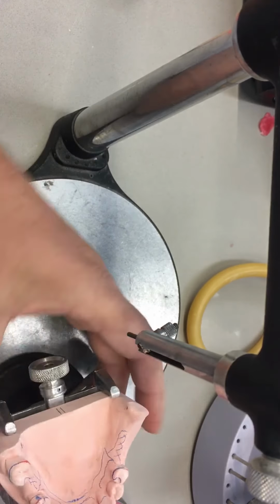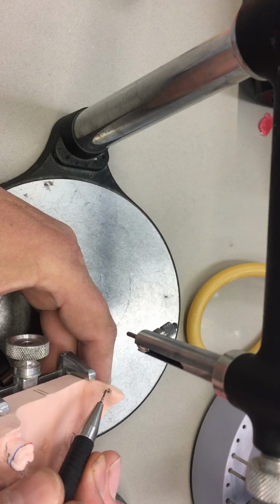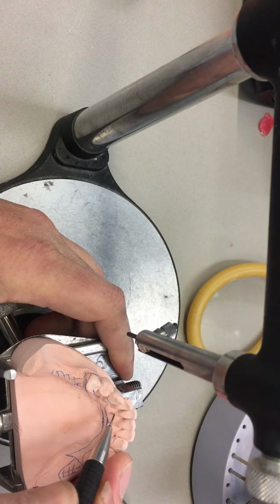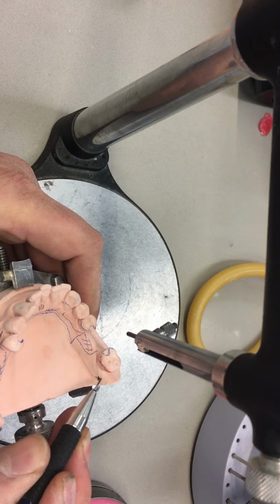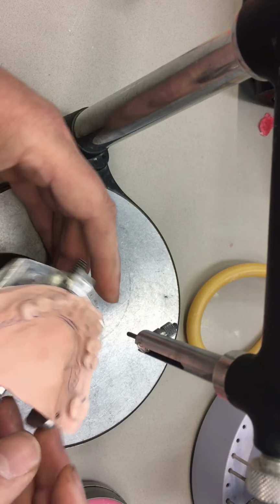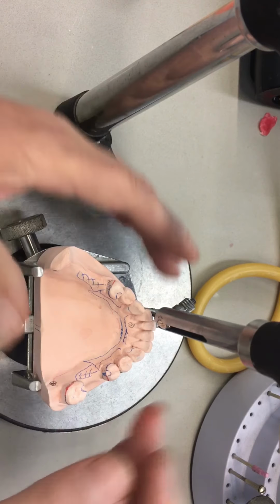And then once they're marked with the graphite, you can X them out and put the bullseye mark there. Now that would be about a 2 millimeter circle. Don't make 6 millimeter circles. This is very finite, going to be accurate. Conversely, don't make them 0.5 millimeter either, or you won't be able to see them. So as you can see here, it's been illustrated with the 3 widely spaced points.